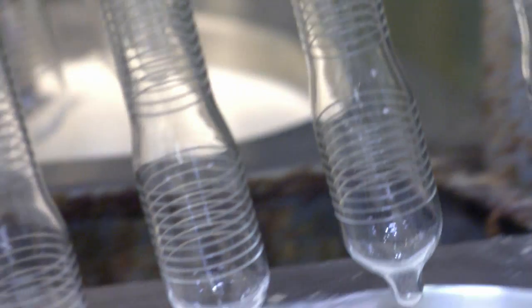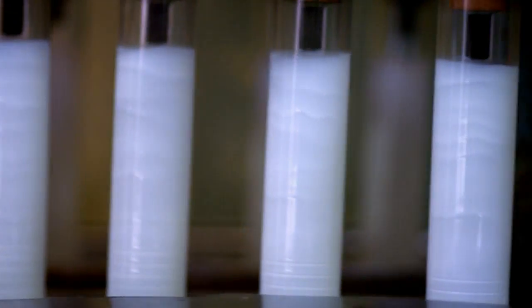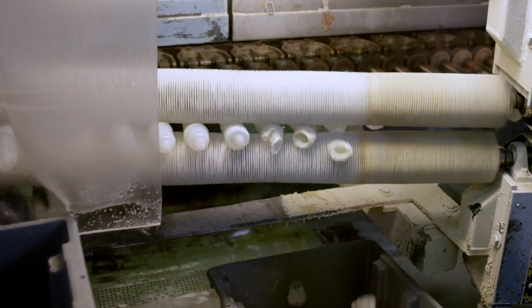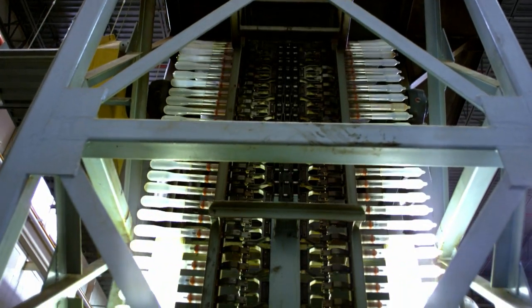Three thousand molds, just like these, are run on each side of the dipping line. The molds are dipped not only once, but twice to assure that a strong, thin film of latex is produced. A latex ring at the open end of the condom is formed to assure a secure fit. Then the condoms are removed from their molds. The molds are washed and dried for another cycle of dipping.